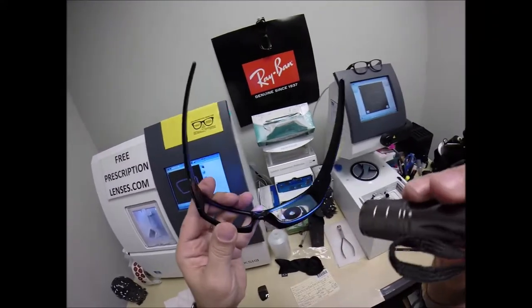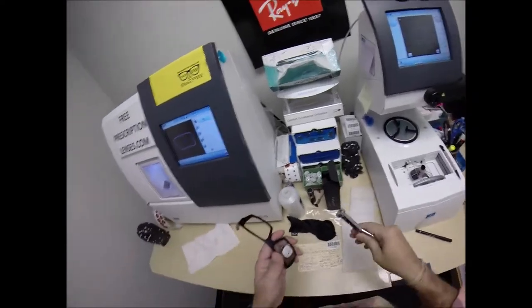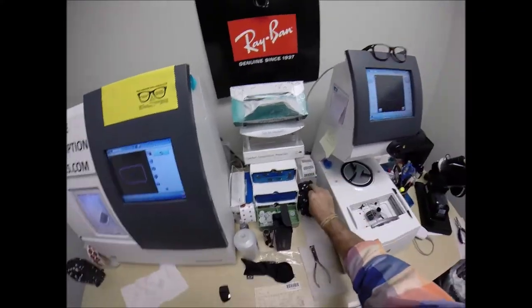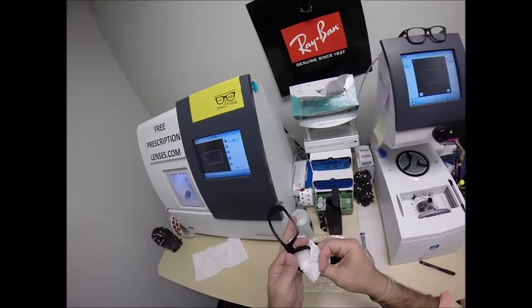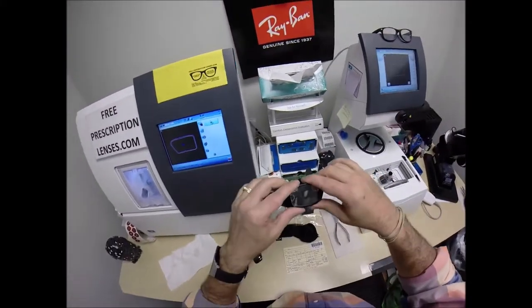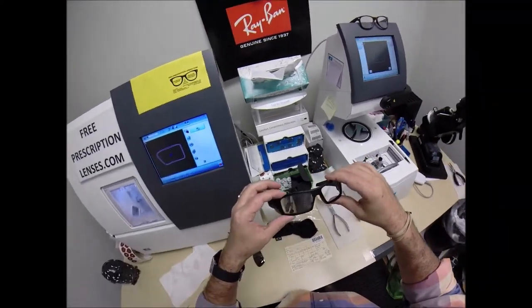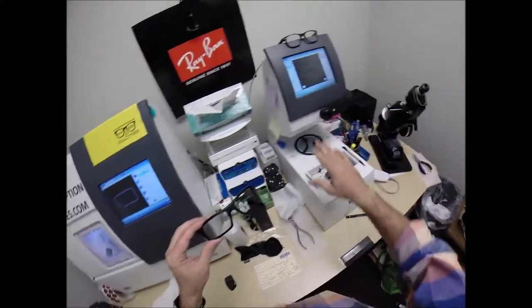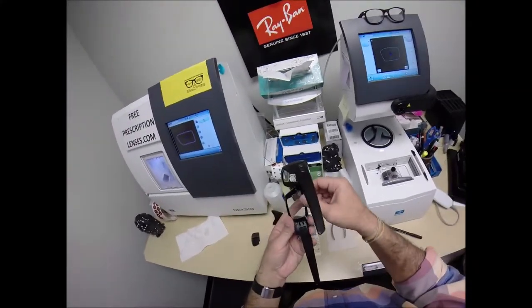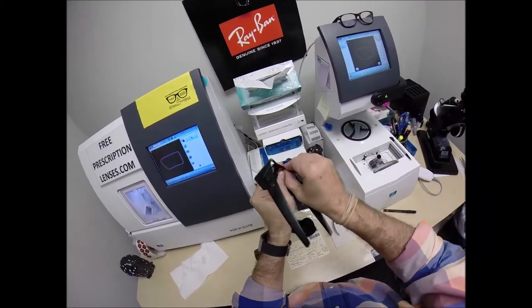Hit the green arrow. Let me pop the block off, drop that back in there, take the sticker off. Add that to my sticker collection. Years from now, should you ever need new lenses for this frame, or anyone else out there who has a gas can, I can cut them for you based on what's programmed into the computer.